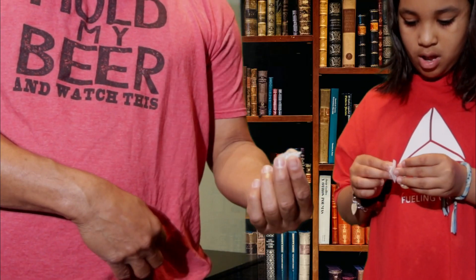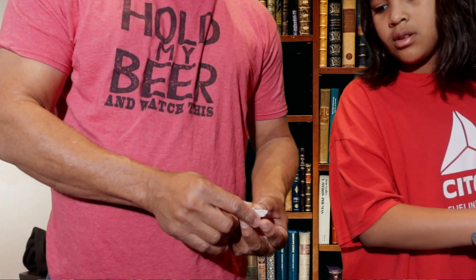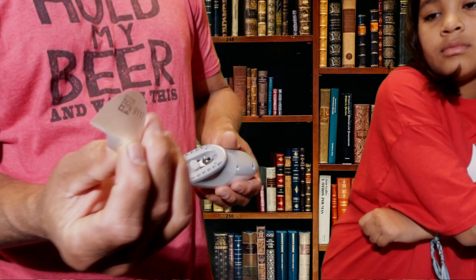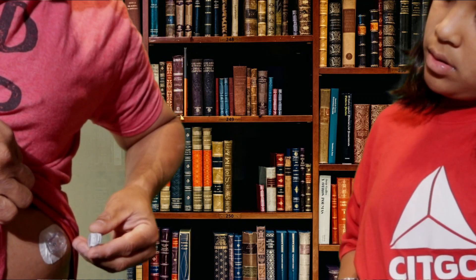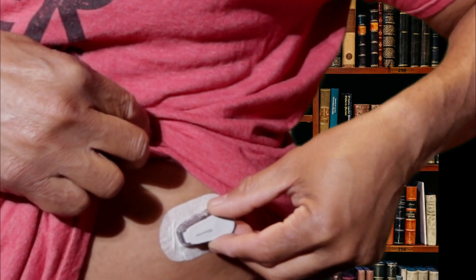Now it's in, so we're going to take the transmitter and clean the bottom part and let it dry out. Remember, when you pull this out, there's a number on it — keep that number, it's important. You need to make sure you have that number. Then we're going to take the transmitter and push it back in — the back goes in first.